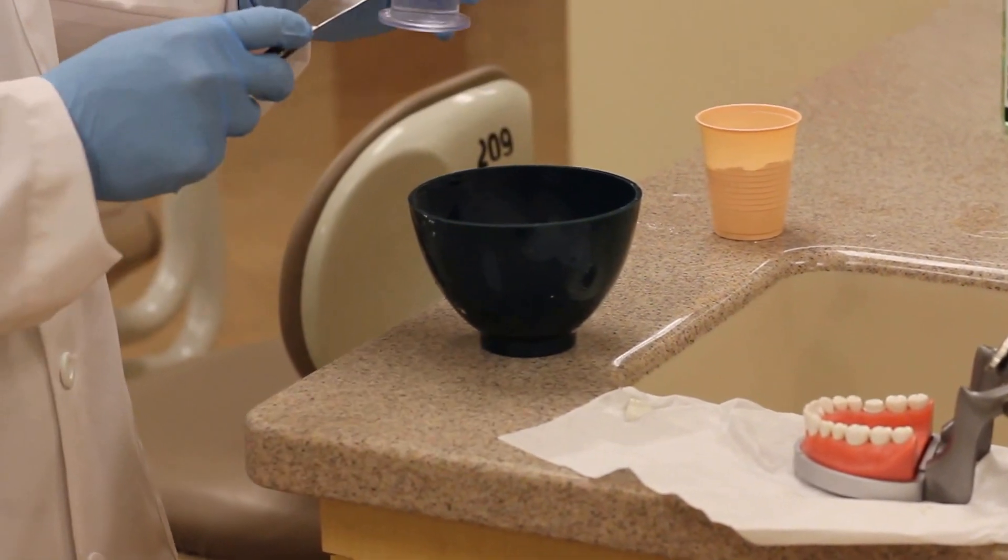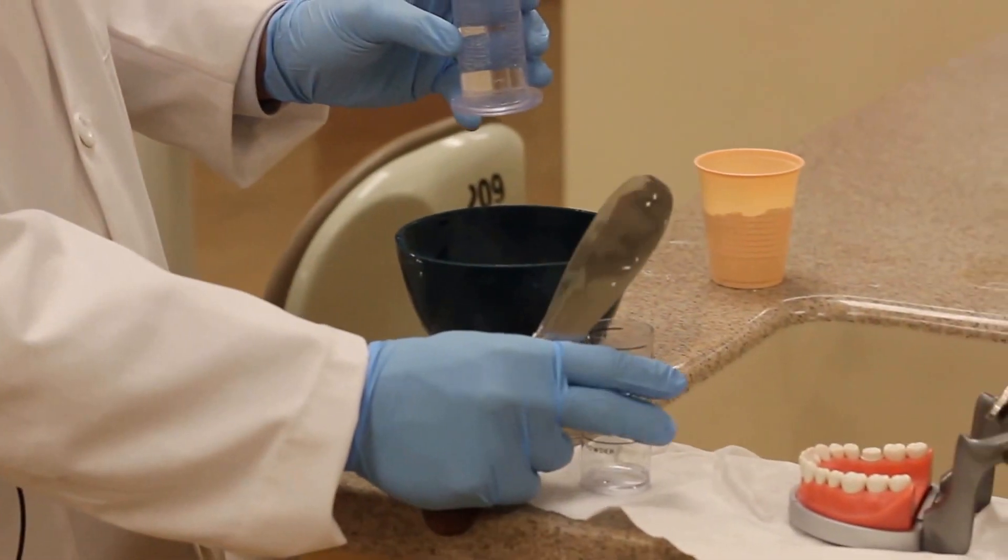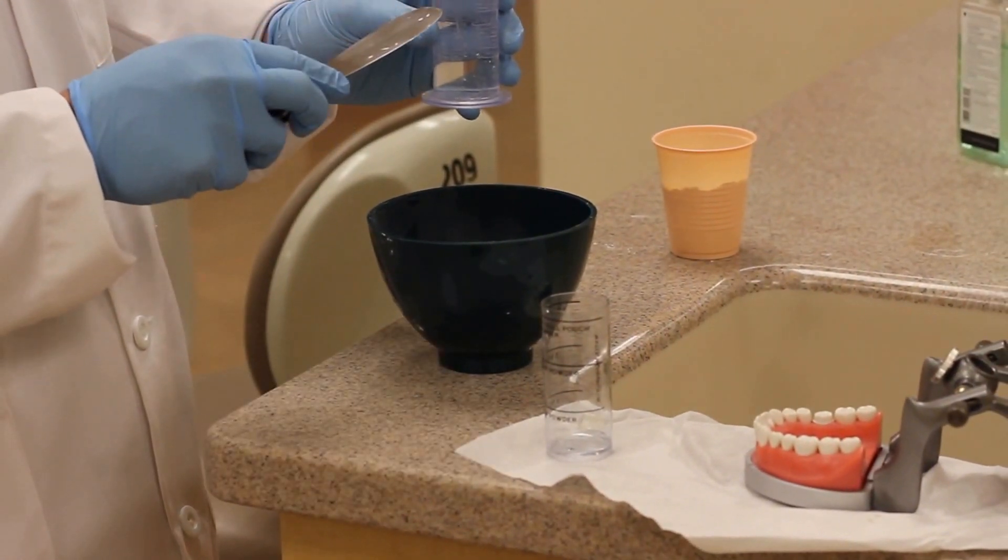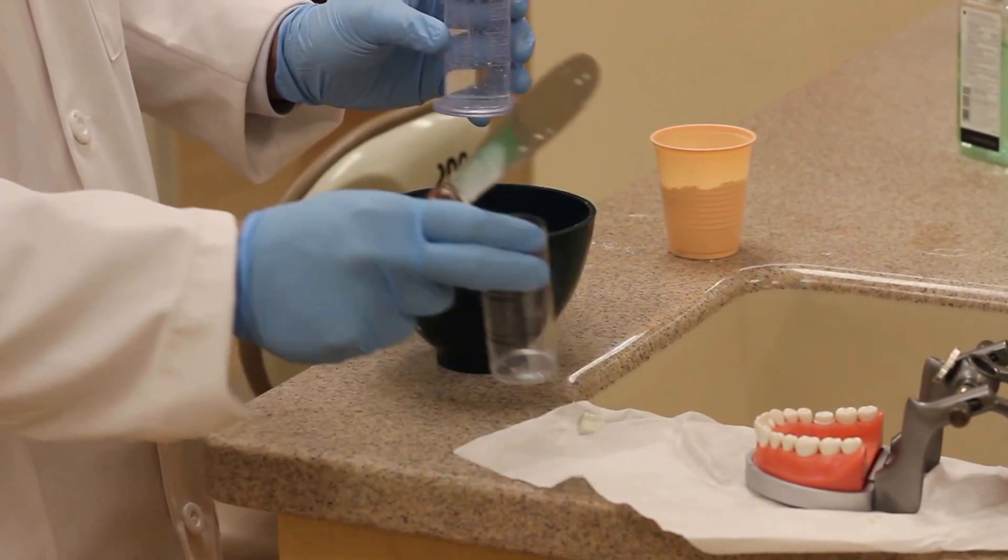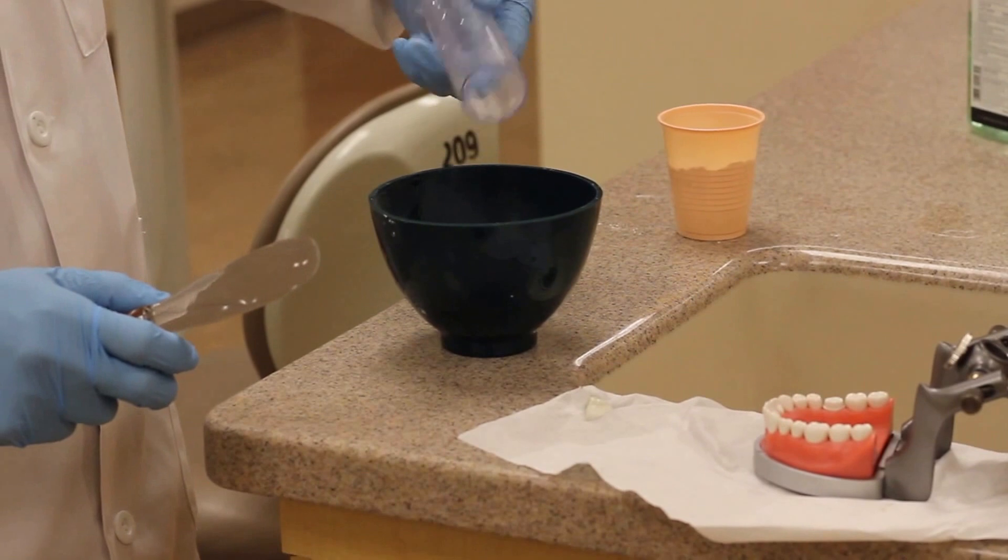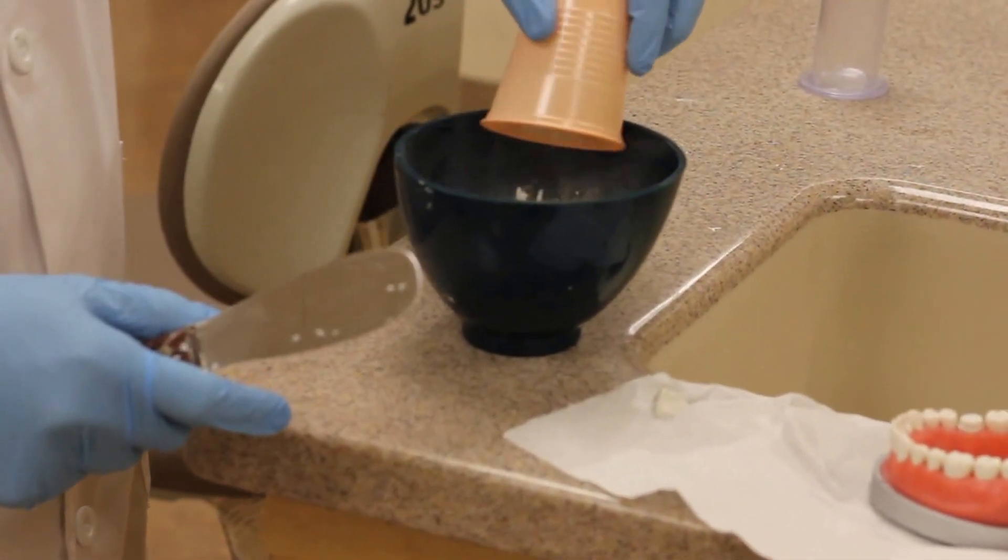I load the tray a little differently. Also the amount of water, if you don't have one of these alginate cups, each line here is 20 mils of water. So if we want to do three scoops you need 60 milliliters in these graduated cylinders. So again I'll add the water first and then powder to the liquid.